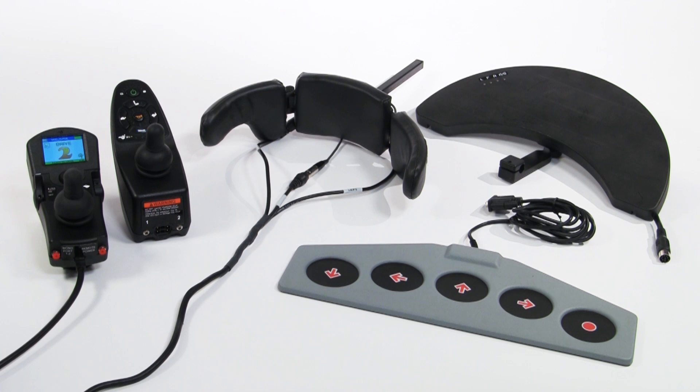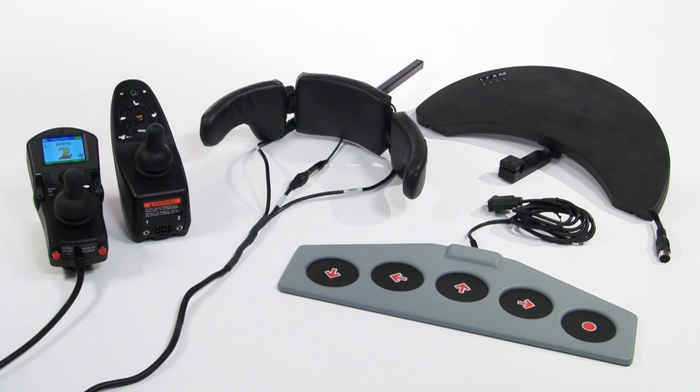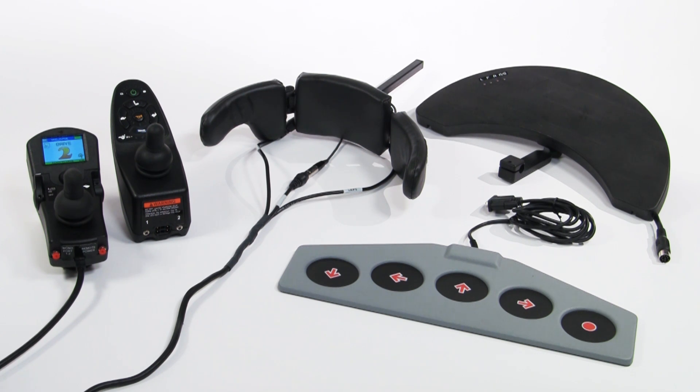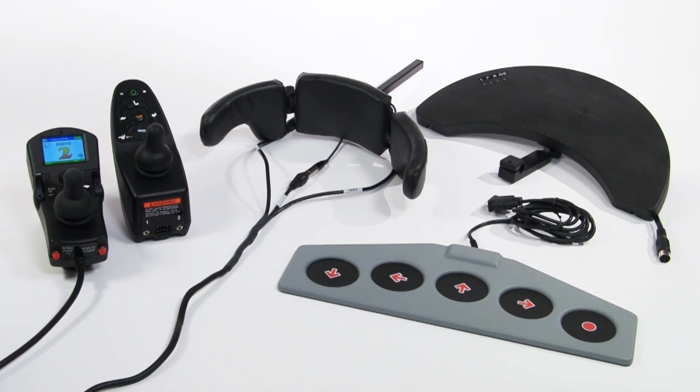Proportional or non-proportional, analog or digital — these are the choices to allow users independent mobility.